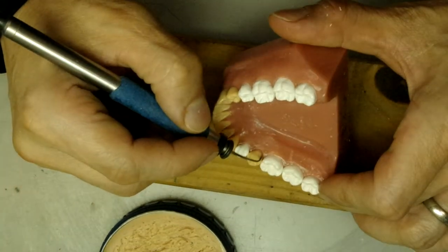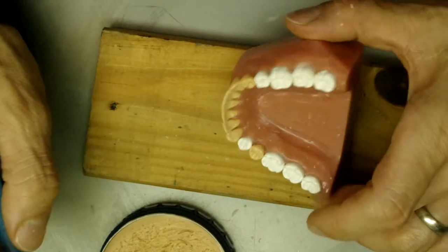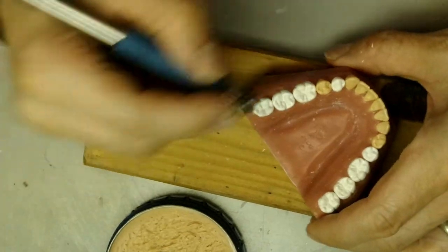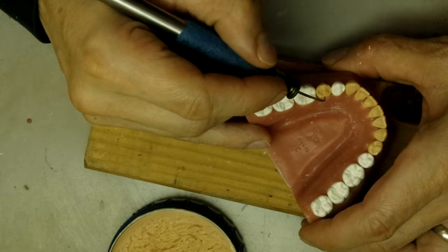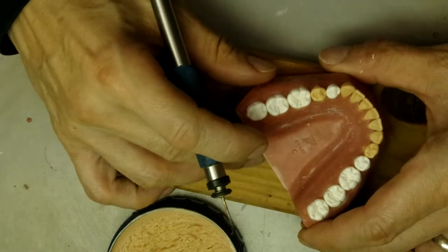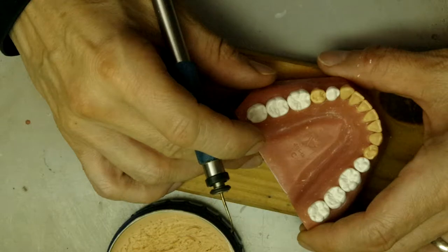Consider this an encore. It's basically just a little addition to the lingual surface, just to make it a little bit more wide — just like that. You see? It's a much different look to it.